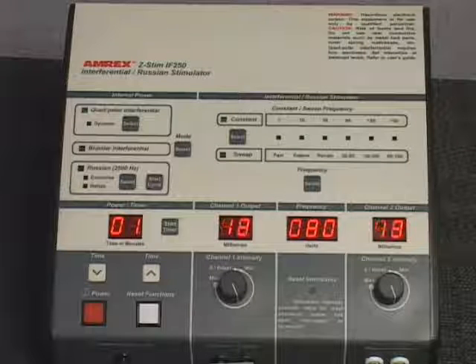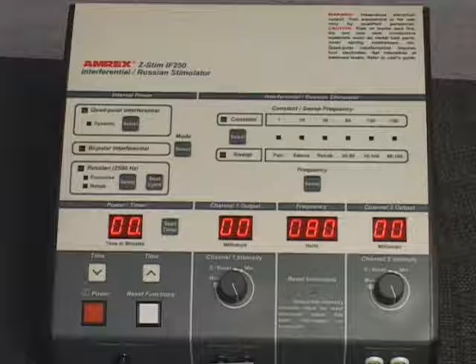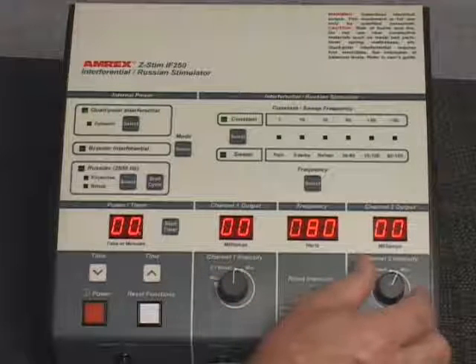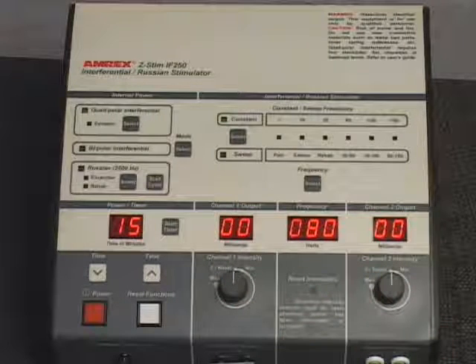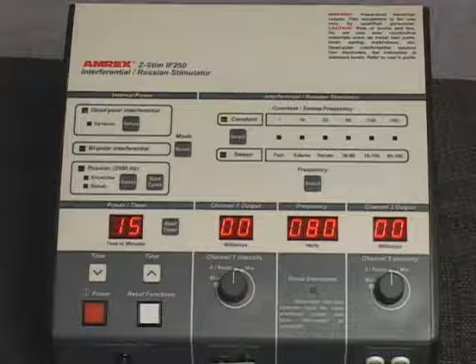When treatment is completed, stimulator output will be discontinued immediately. The intensities reduce to 0 as indicated on the intensity displays. The treatment duration reduces to 0 as indicated on the power timer display. The reset intensities indicator light flashes and the generator emits an audible signal. The intensity controls must be returned to the 0 reset positions, enabling the audible clicks, which will turn off the reset intensities indicator light and the audible signal. The treatment time will default to the factory setting.